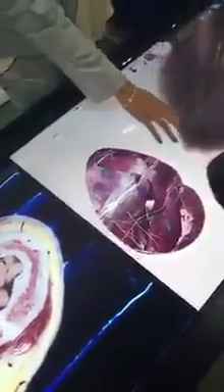And press this undo button. What's interesting is these are actually the scans done from the cadaver, so everything you see here is what we saw at 0.6 to 0.8 millimeter thickness. Each time I turn around and slide through these sections, I can see where it really lies. And you're not just limited to the head and neck — you also have areas like the brain, large areas like the thorax and abdomen, all the way down to the leg and foot.